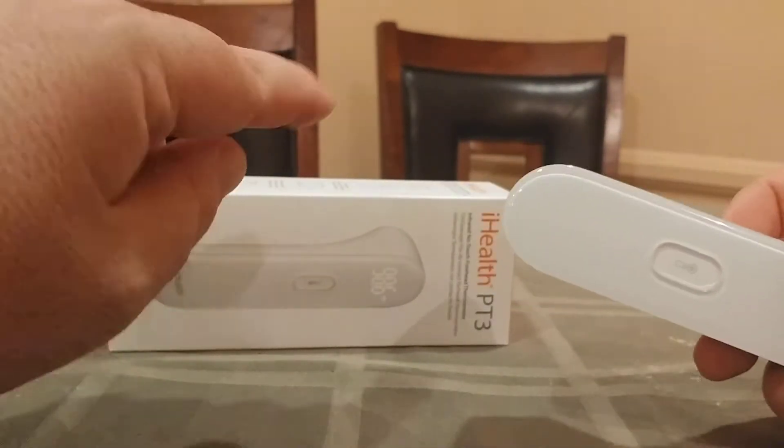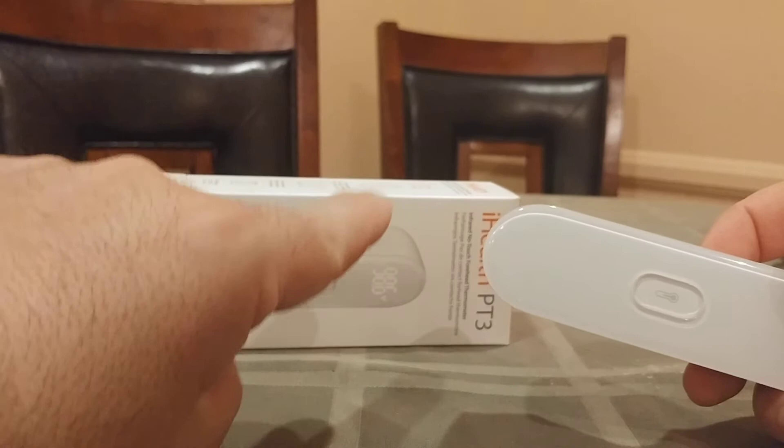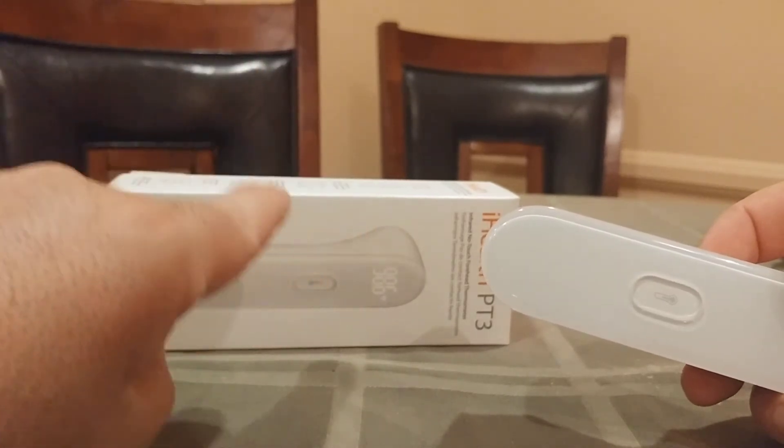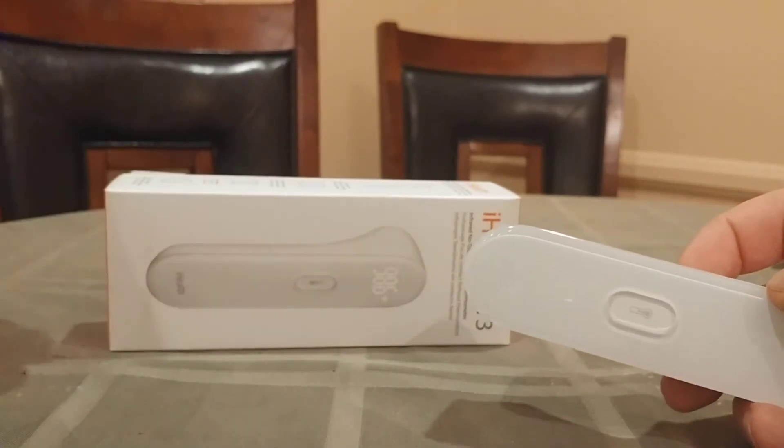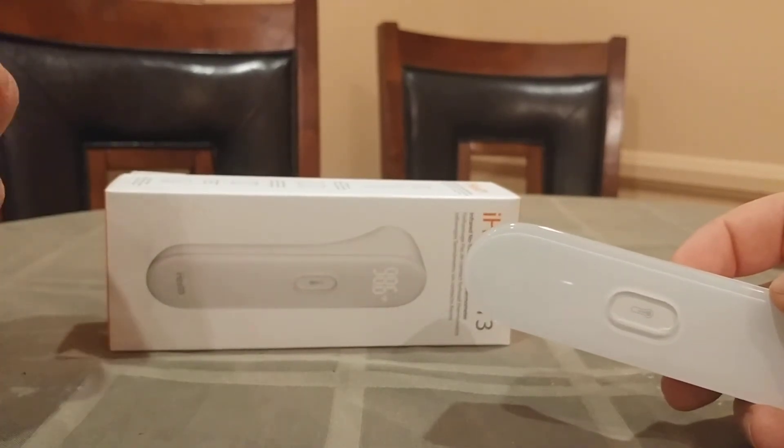So what I did in the previous video — if you noticed — I drew that V shape in my ear and took the temperature reading more in my ear, and I got 98.6, which is the most accurate you can possibly get.